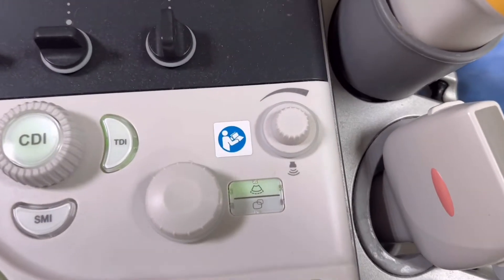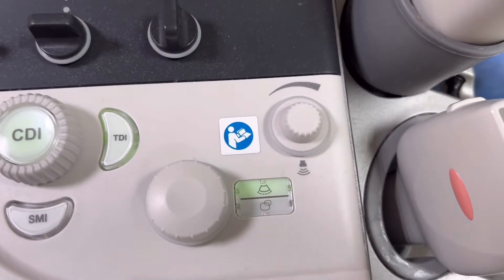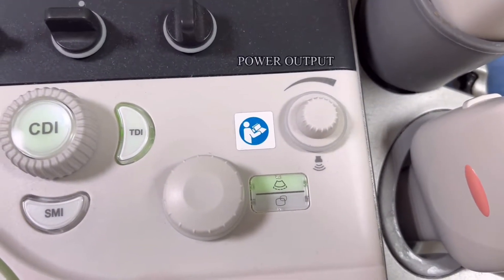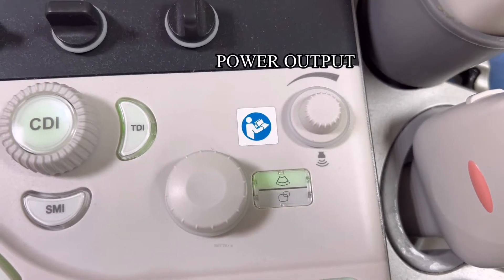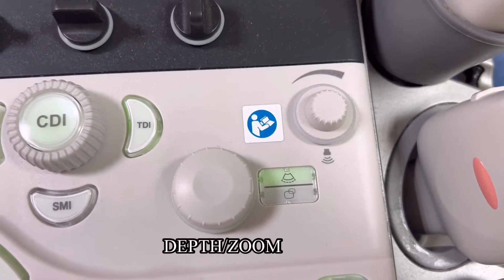These are the knobs for power output, depth adjustment, and for zooming your images.